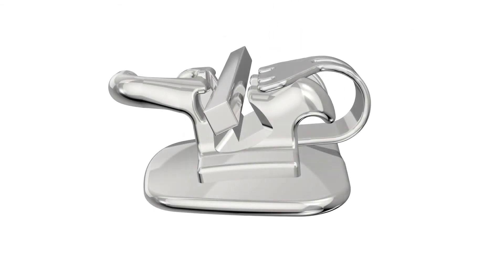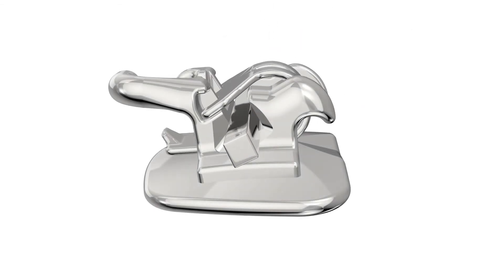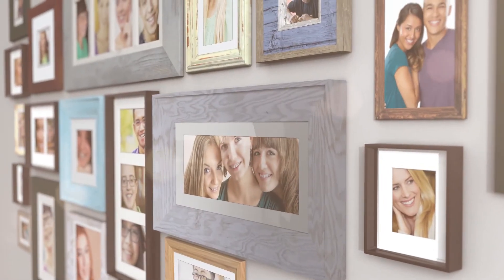Empower's leading-edge design and functionality combined with your orthodontist clinical expertise can create a great smile that will last a lifetime.